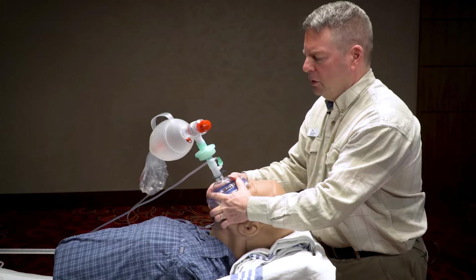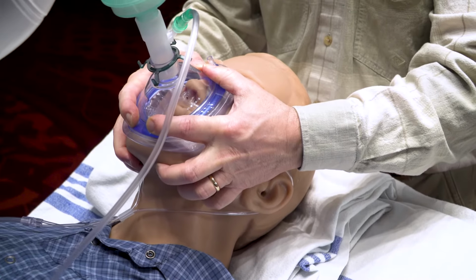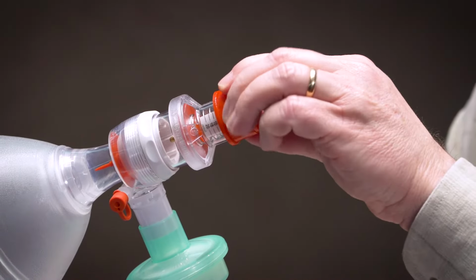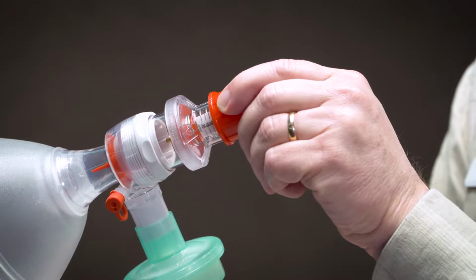And as you increase it, you'll increase the ability of the patient to get oxygen from the system. And what it does is it builds up the pressure inside of the patient, but only to the level that I've dialed the PEEP to. So normally the PEEP valve would start at 5, and then I could adjust it from there based on what the oxygen saturation is.